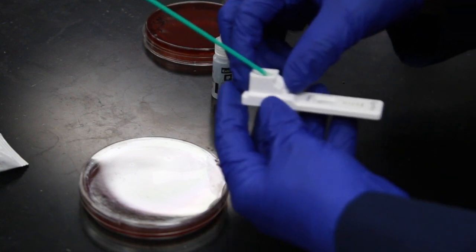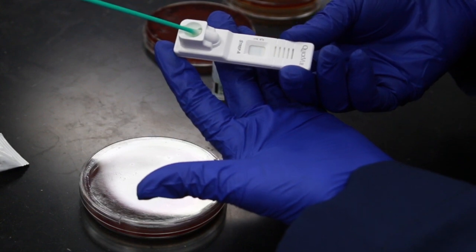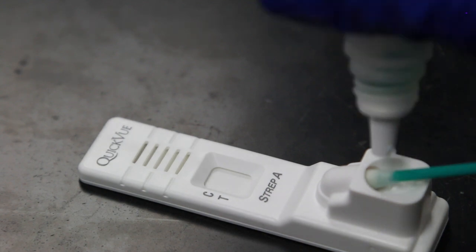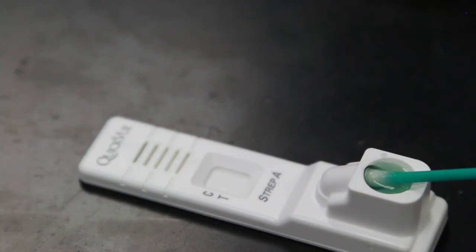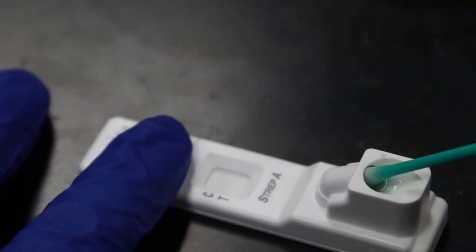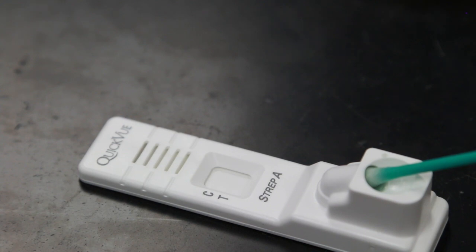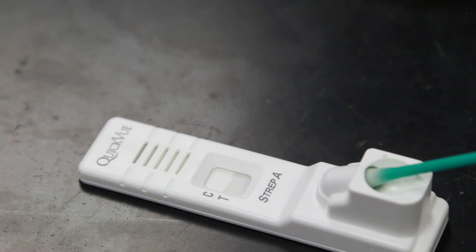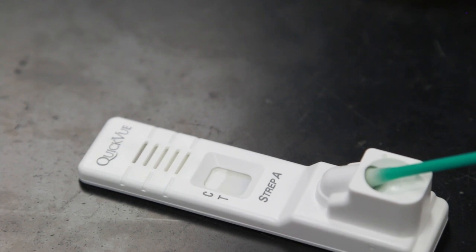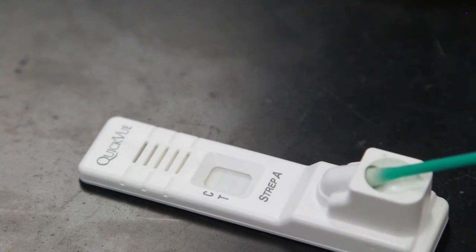This will help get the buffer solution to the actual test window. You can see here this test is negative. When you add the buffer into the opening of the LFD and allow it to soak through the swab, it will travel up the filter paper along the test line and the control line. On this rapid strep test, T stands for the test result for your organism and C stands for control.